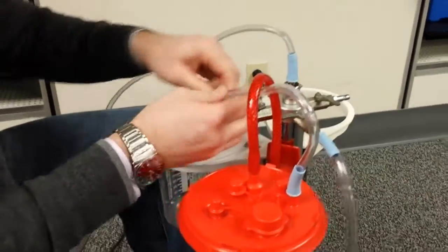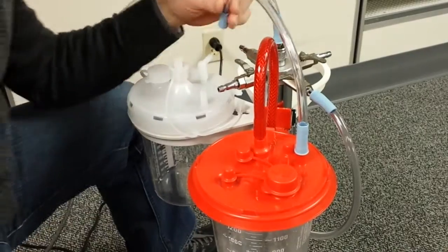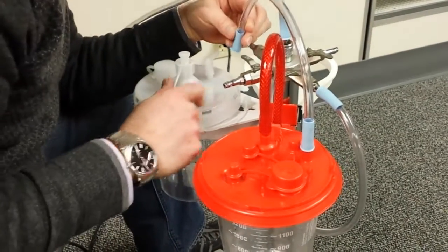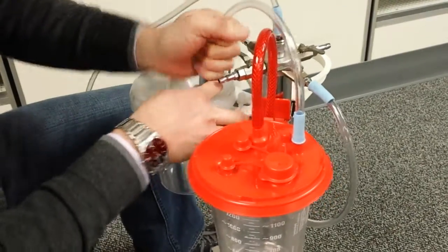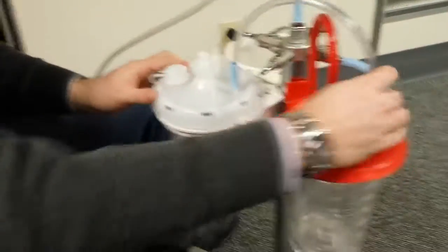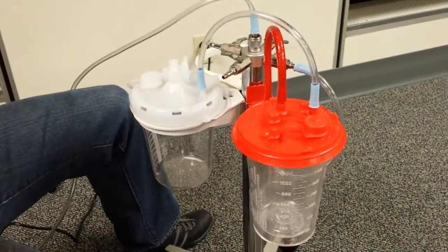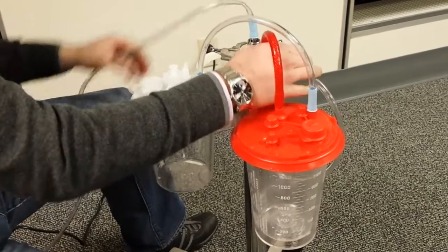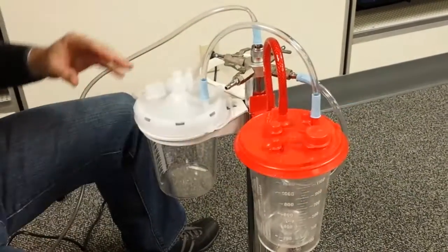Because you don't need to do a shut-off on this other system. So I don't have two canisters. I'm using our Allied canister, which obviously works the same way, but we have something called a tandem port versus ortho port. You hook it up the ortho to ortho or tandem to tandem. At the end of the canister system, if you're going to do four of them, you go all the way around. If you're only going to use two canisters on one side and two canisters on the other, you just do it as I'm showing you here.